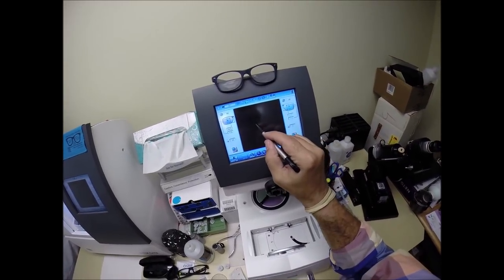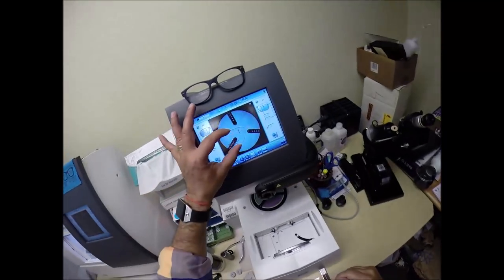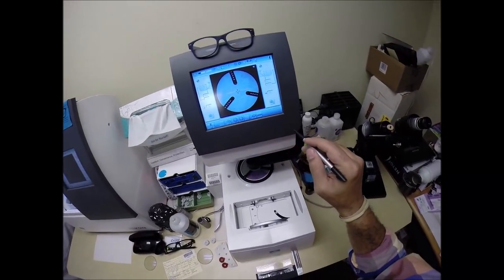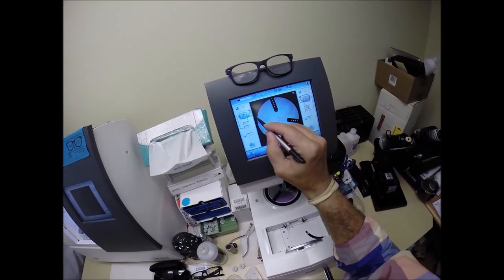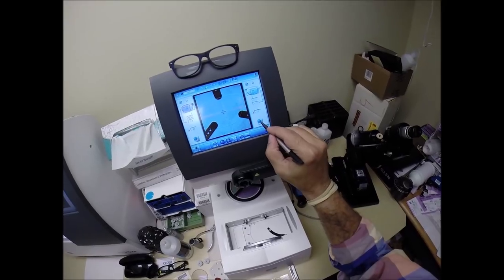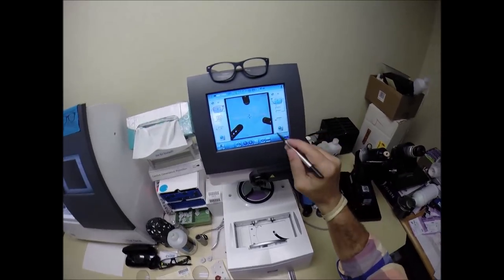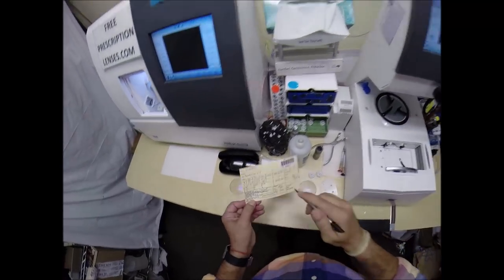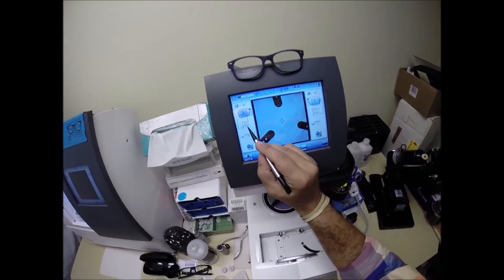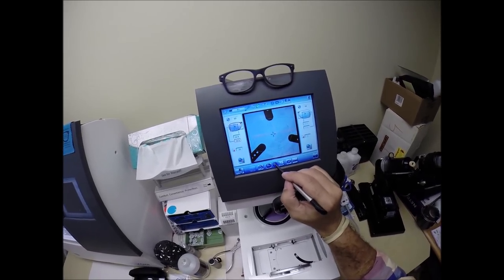This is the shape we are cutting, only magnified. I like to magnify — come on back to the right lens. This is the shape that will be cutting. Your pupillary distance is 32.5; the computer starts at 32.5 which means I don't have to do anything there. I do want to raise the optical center height up to 20, so I'm going to tap this plus button a few times until we get it to 20.